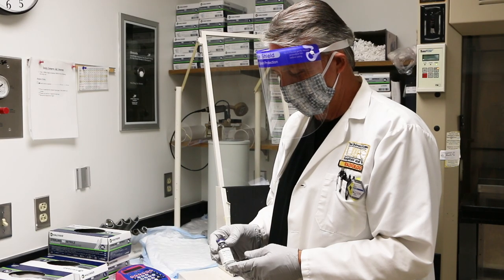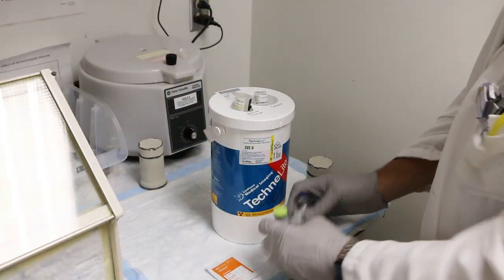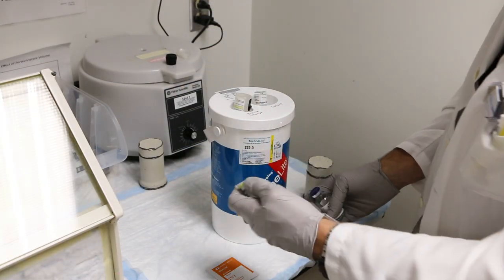Ensure that you are wearing your lab coat, badge, and gloves. Gather the materials you'll need, a saline charge vial and a collection vial.